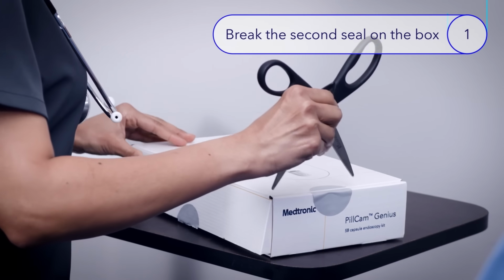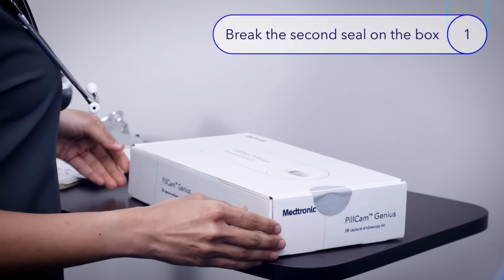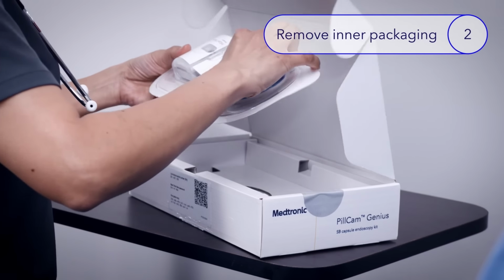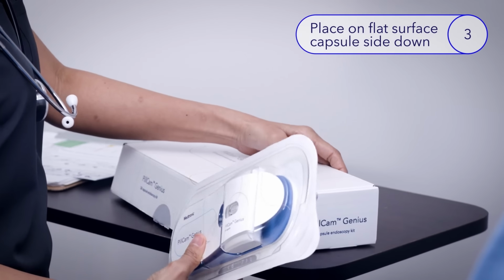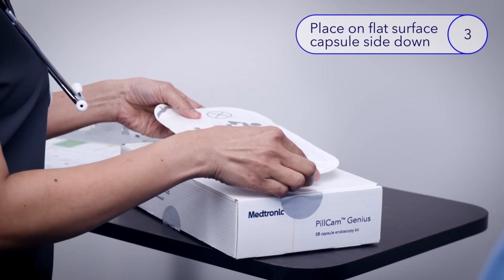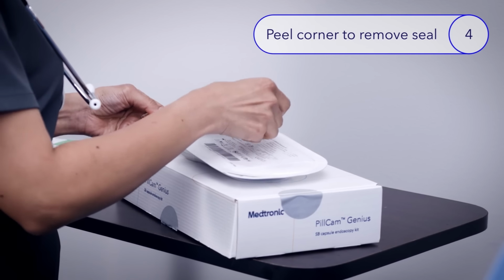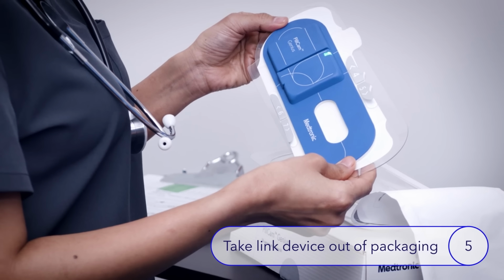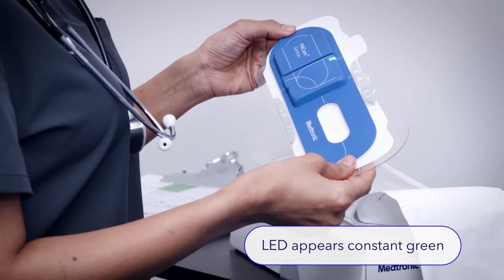Now you are ready to open the PillCam Genius SB kit by breaking the seal on the side of the box. Remove the packaging and place on a flat surface with the capsule side down. Next, peel one corner to remove the seal from the link device protective packaging. Take the link device out of the packaging. Note that the LED appears constant green until the capsule is activated and communication has begun.